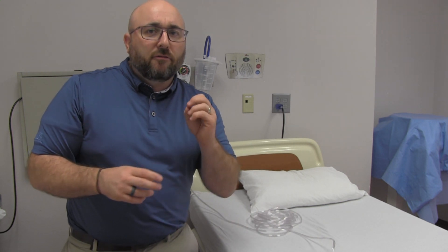You have your patient on oxygen at home with a home concentrator. A concentrator brings in room air and pulls out the oxygen — it may not deliver the highest percentage as in the hospital, but the flow would be constant. Yet I've heard many times from patients that they can only put 25 or 50 feet of oxygen tubing, and after that they have to increase the flow to reach them.